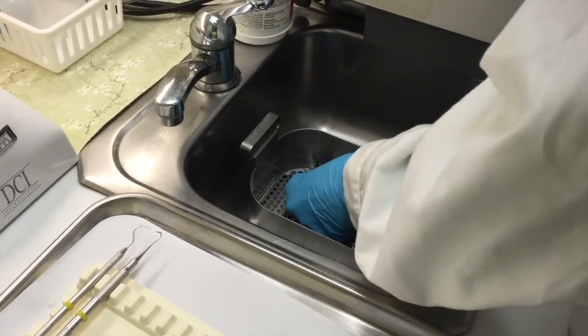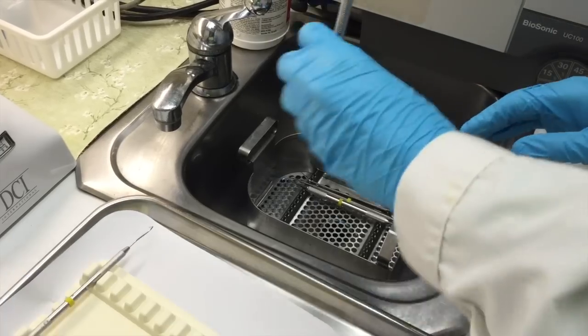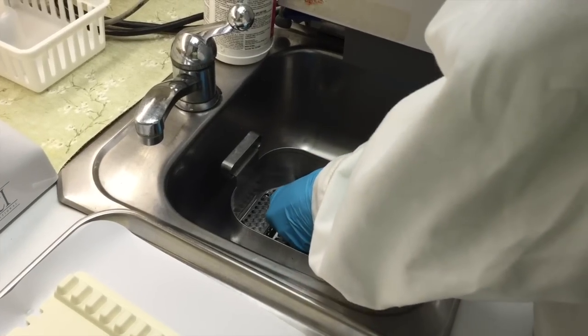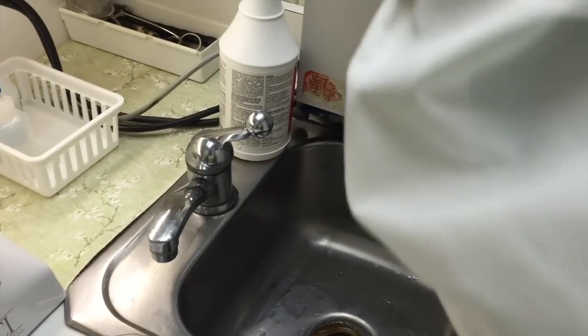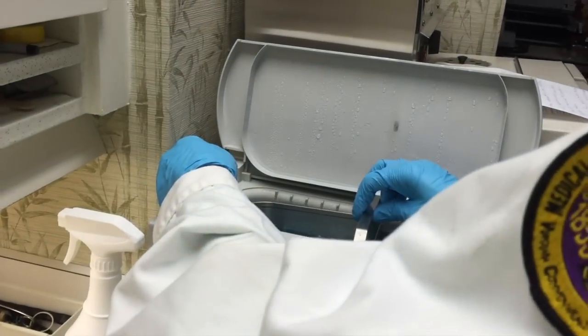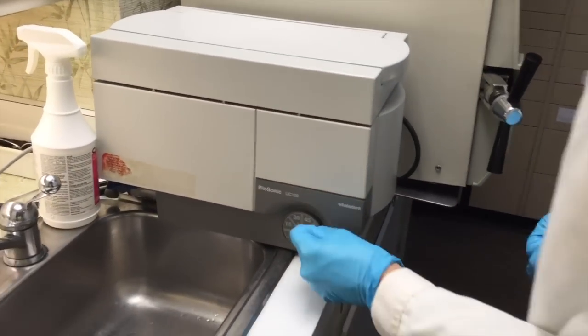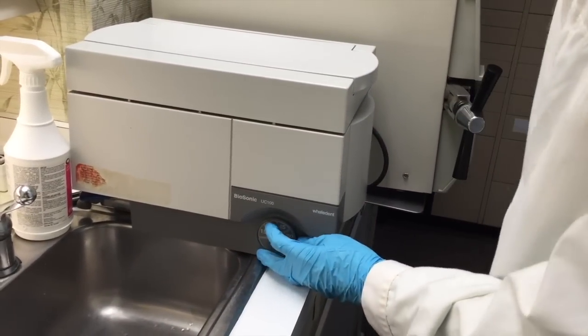You're going to want to put each instrument in a groove of the tray. Once you've done that, you're going to put it back in the ultrasonic cleaner and set your time. We're going to do 30 minutes for this.